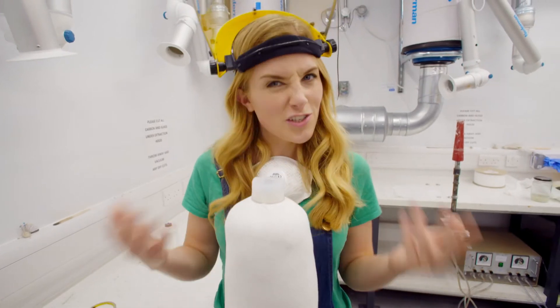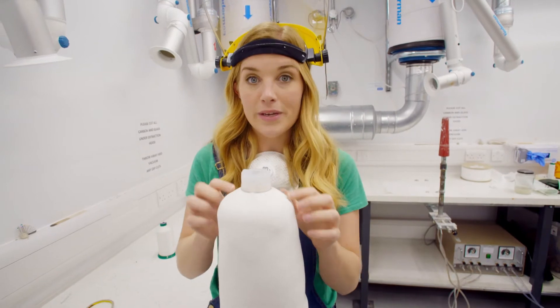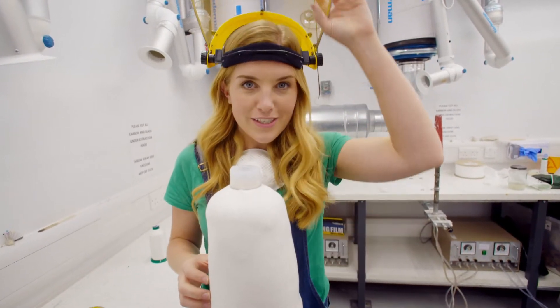All these materials are soft, aren't they? And we need the socket to be hard and strong. So to do that, Adam's going to cover it with a liquid called resin.